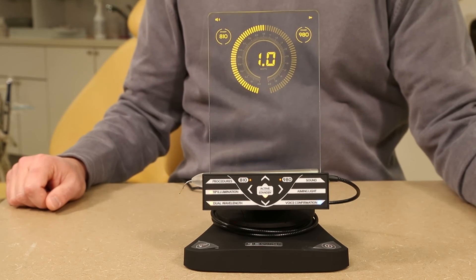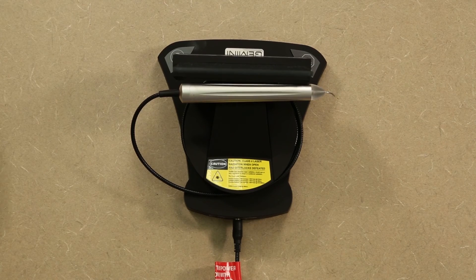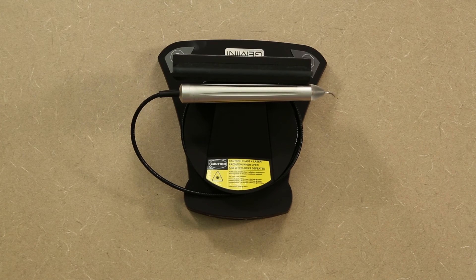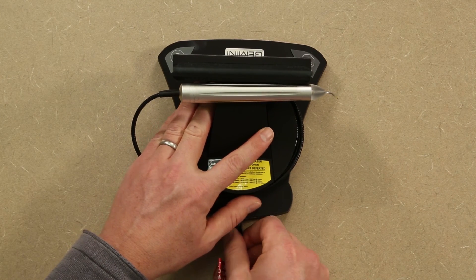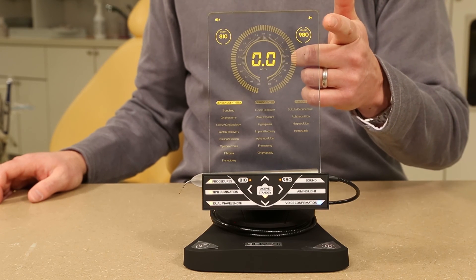At any time, the laser can be turned off by the stop button in the lower left hand corner. The unit can be unplugged and on a full charge will last approximately 90 minutes. The battery indicator in the upper right hand corner will display the current status.